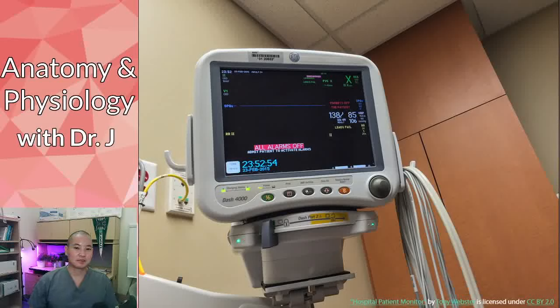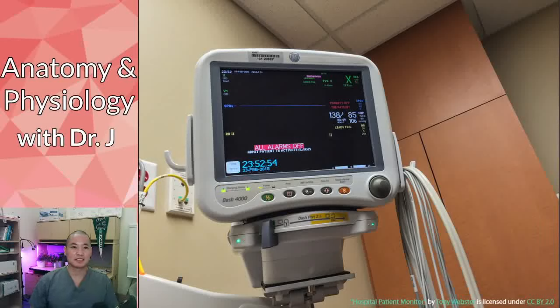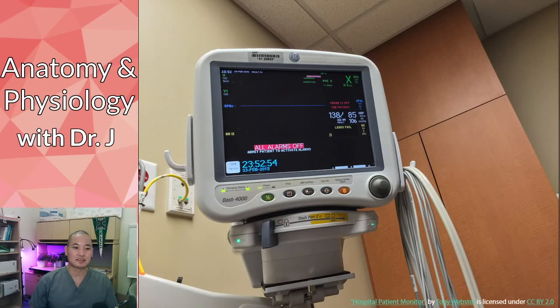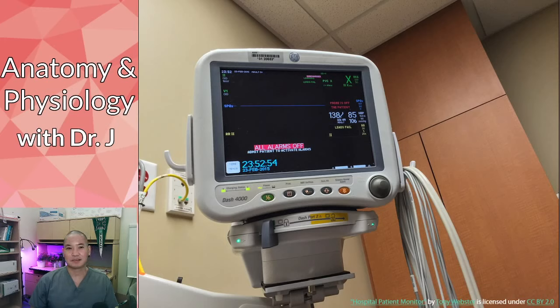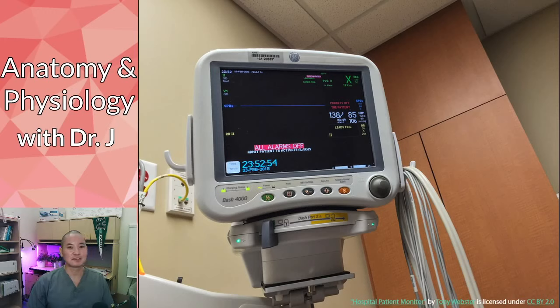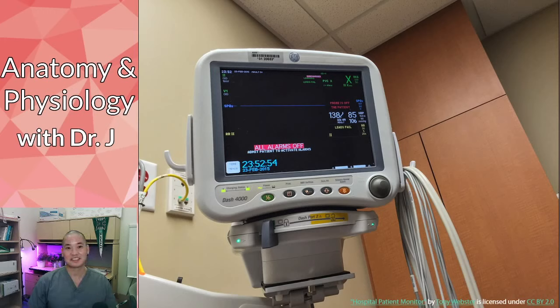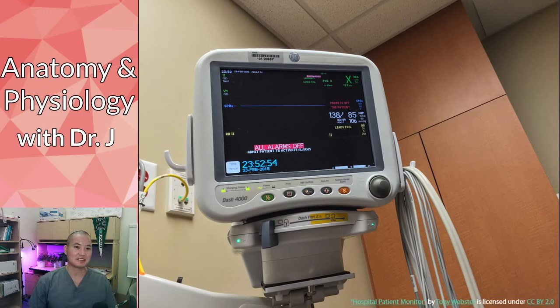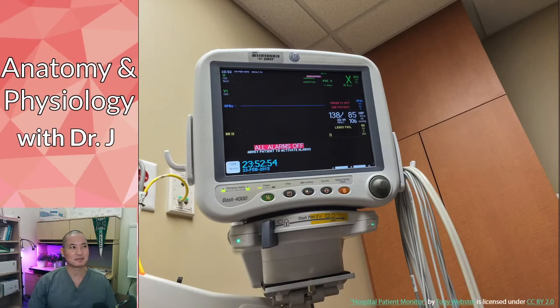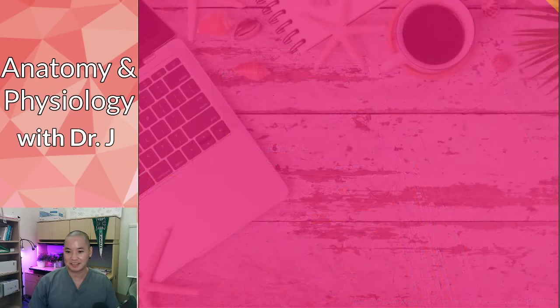A lot of you, especially if you're going to the health professions, will be quickly familiar with this. So what we have here is a patient monitor, and you probably see all these lights, all these graphs, all these numbers, and in case of serious conditions, you might hear all these alarms going off. It's not really like drastic alarms, but you know what an alarm sounds like.